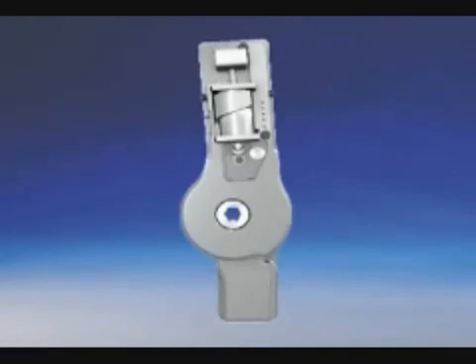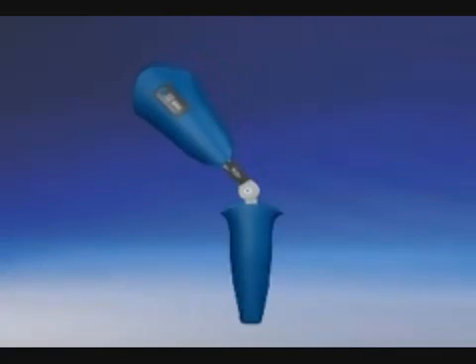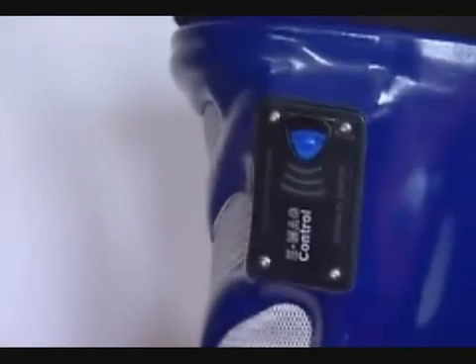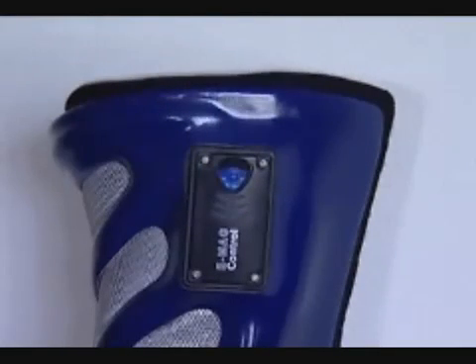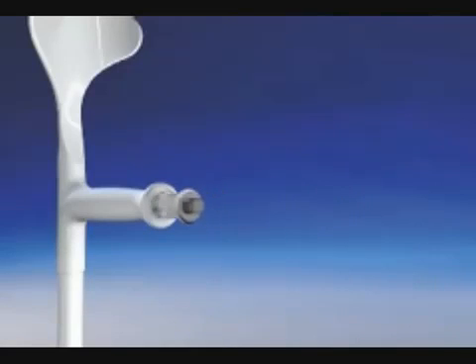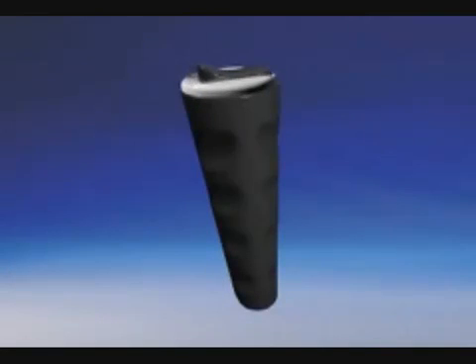The completely enclosed knee joint is secured by an electromagnetic lock. The lock is controlled and its function monitored by a microprocessor-controlled electronic system. A sensor incorporated in the knee joint feeds the current status back to the electronic system, which indicates the joint status to the user via vibrations, sound, and light signals. By pressing the button, the patient can change the feedback mode to vibration only. The remote control can be used as a handheld system or integrated into a crutch, and serves to control opening and closing of the lock. For safety reasons, any remote control function must be actuated twice.